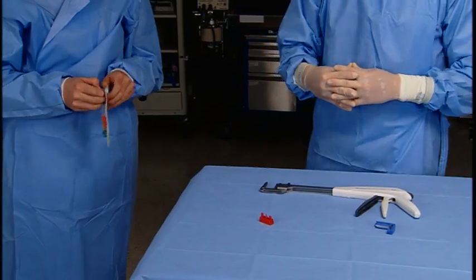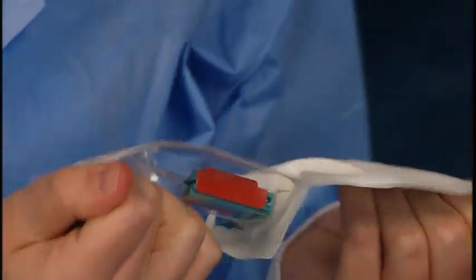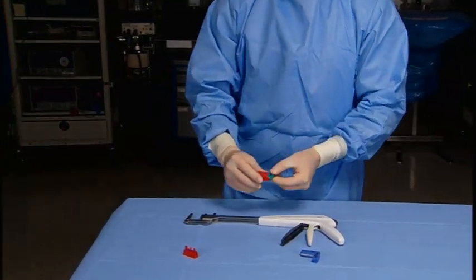Using sterile technique, remove the reload from the package. To avoid damage, do not flip the reload into the sterile field.